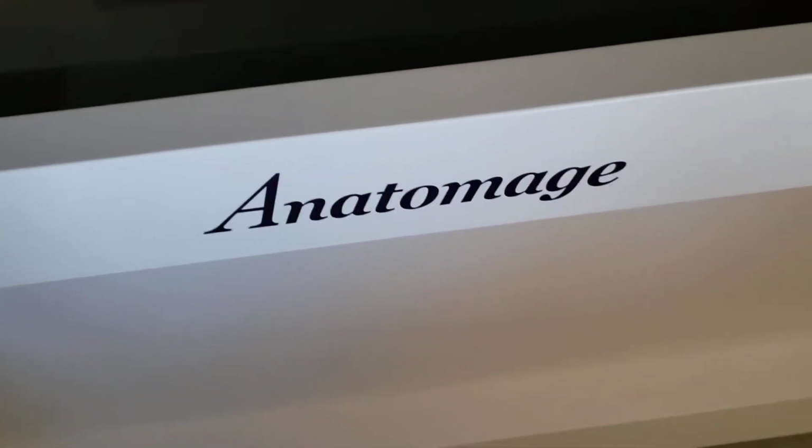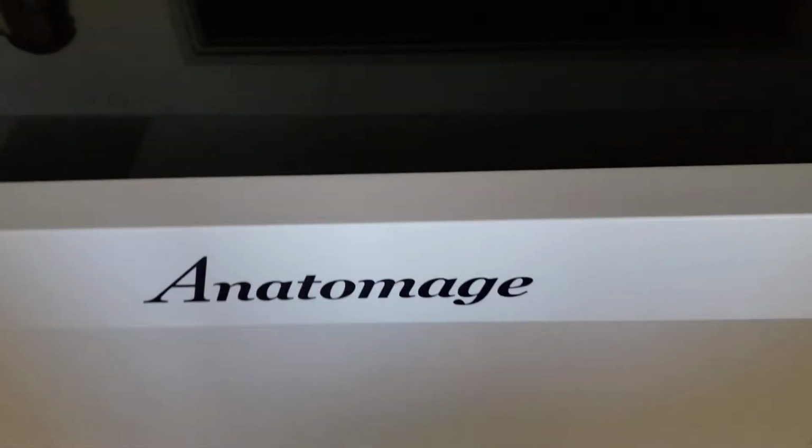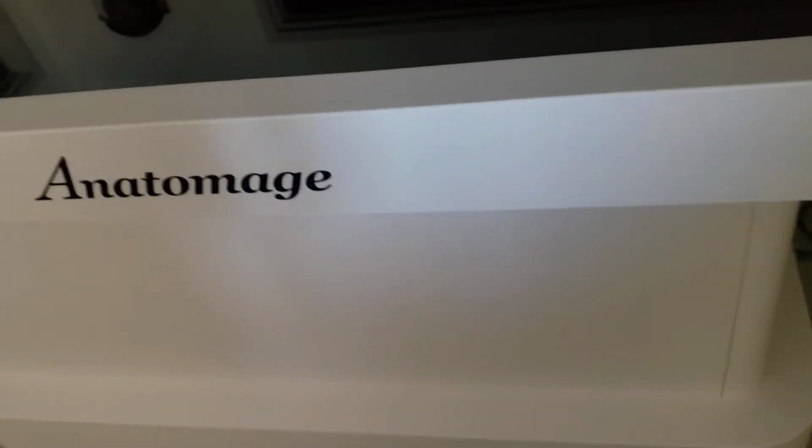This is Brother Barnes. Let's start from the turn on of the Anatomage all the way down to the bones on one of the models. Let's go down here and there we go. Let's turn this table on and see how long it takes to boot up. Basically a very large computer, isn't it?